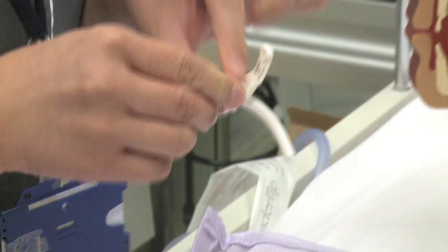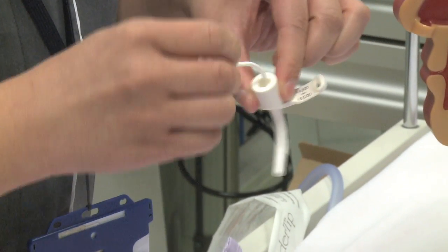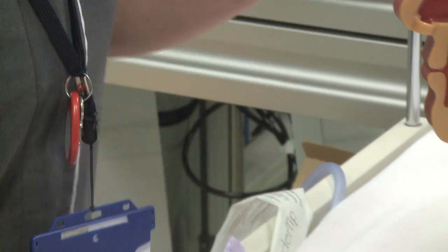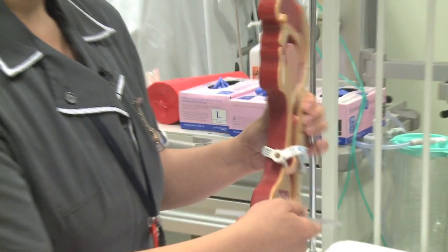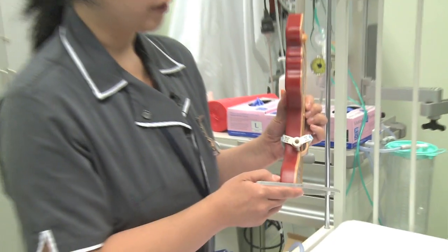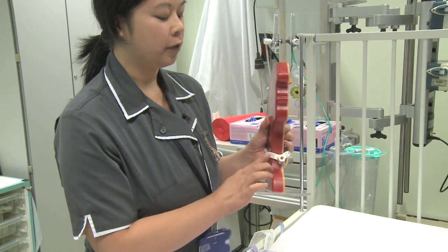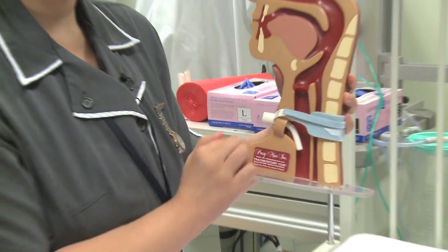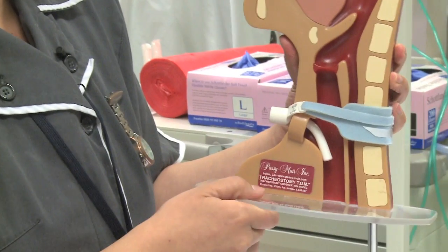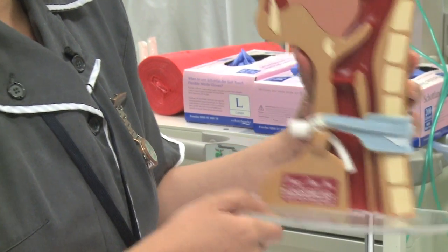They all come with an introducer. What you will see, in terms of when it is in a child, is that from the front you will only see the outer cannula and the wings, and internally in the trachea is where the internal cannula will sit, so the child can breathe.